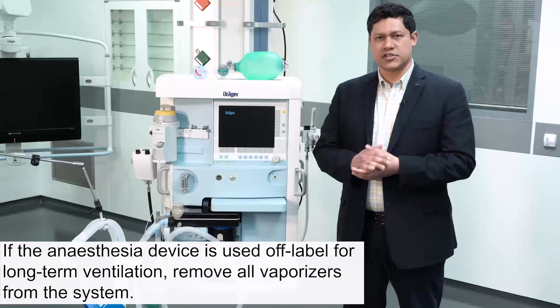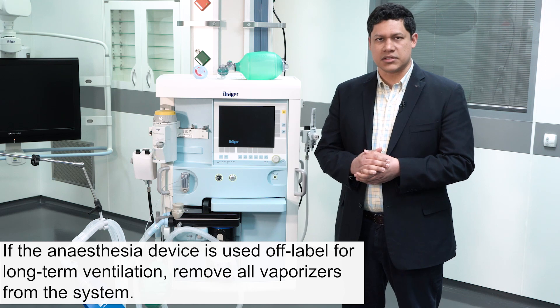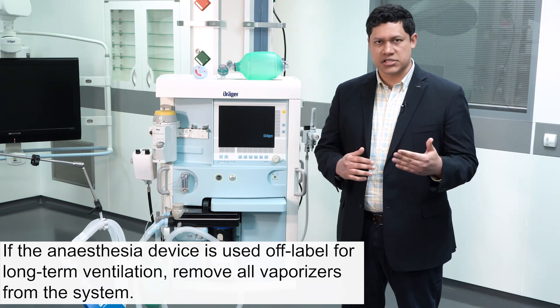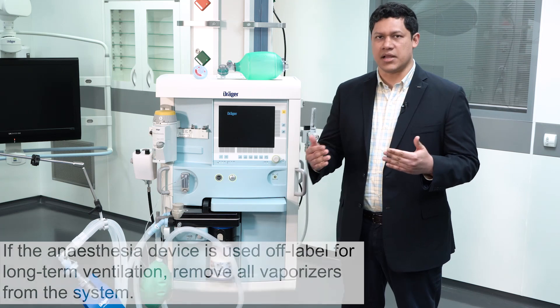The objective of this video is to spot the differences between the ventilation modes in an anesthesia device and an ICU ventilator.